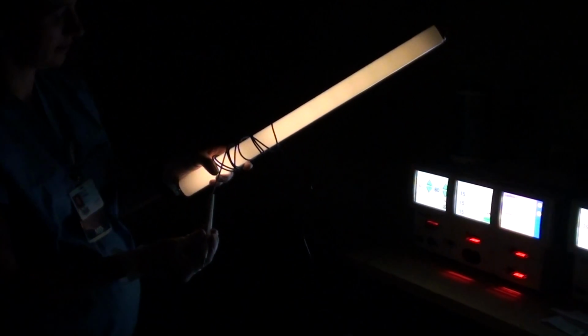So just pressing the button, you can see that energy will actually transfer, despite the insulated cord, into the light bulb and actually illuminate it. That was using the cut, and again, coag. So that's the end of the simulation for this module.